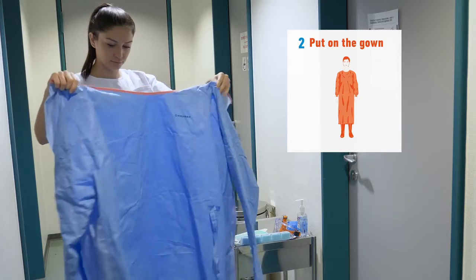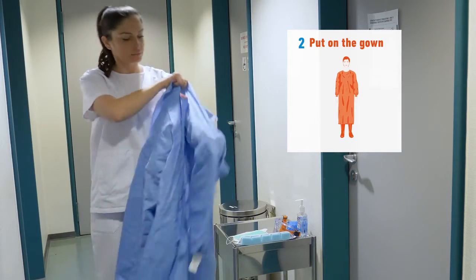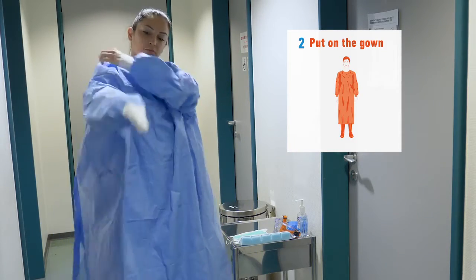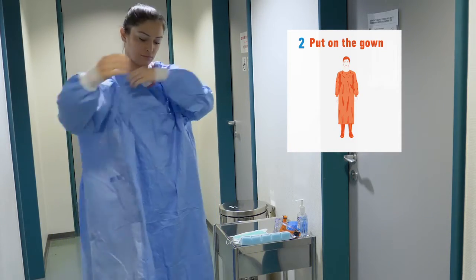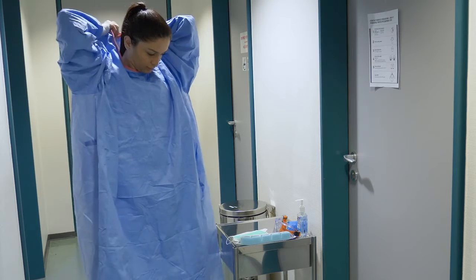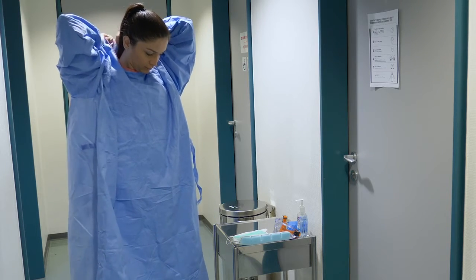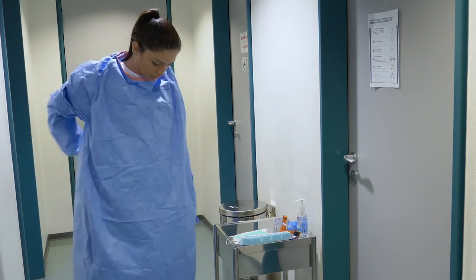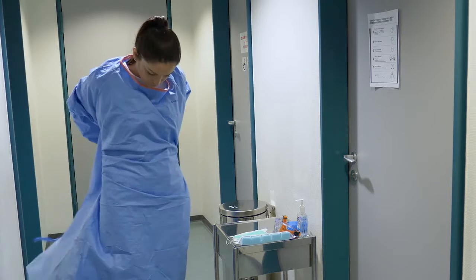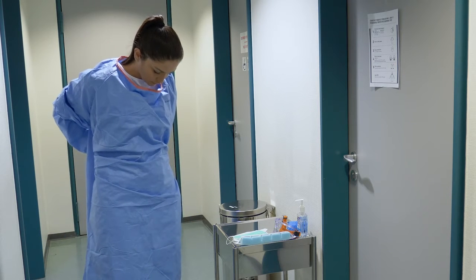Now you're ready to put on the gown. Tie back long hair if applicable and inspect the equipment for damage prior to putting on each piece. Put on your gown, tie it around the neck and the waist, and secure it around the back. Ensure all clothing is covered by the gown.